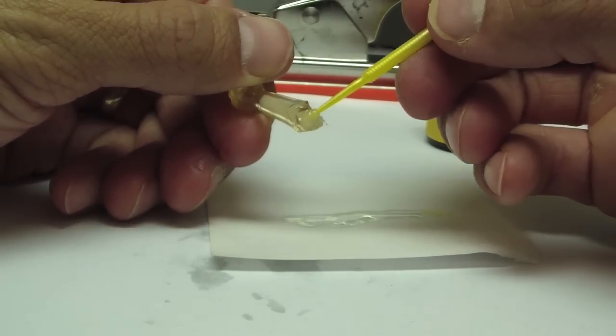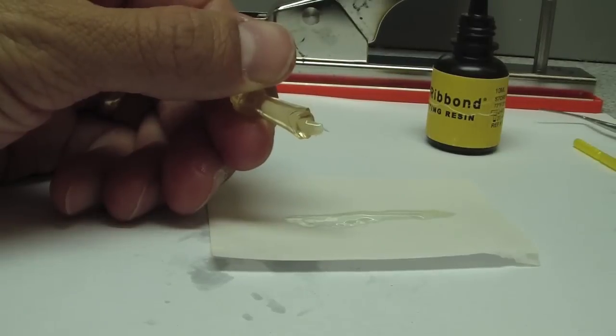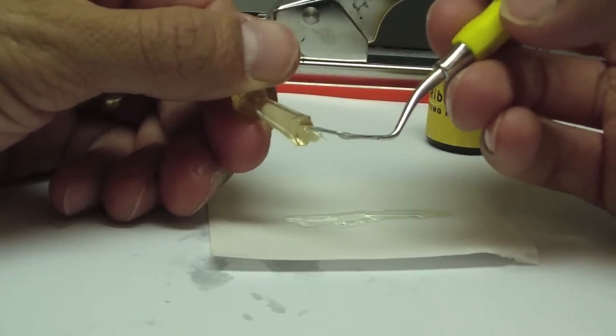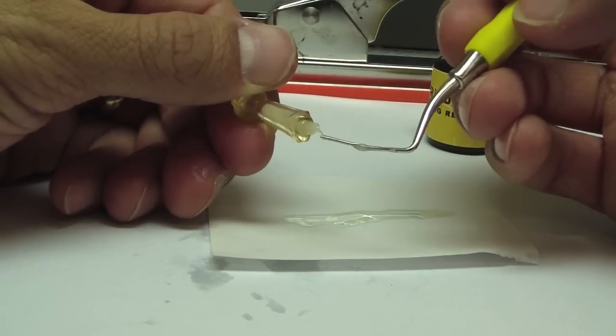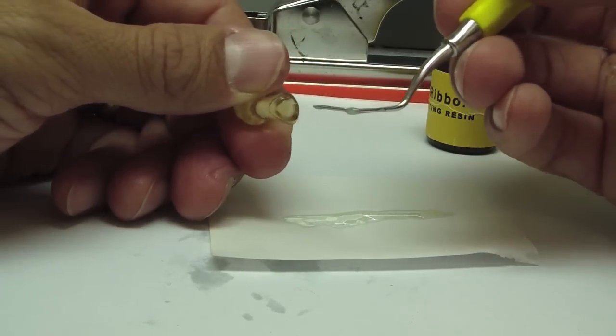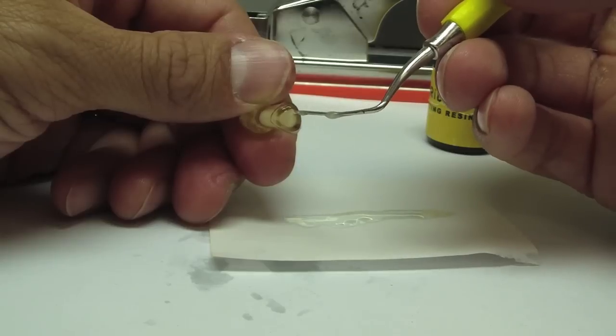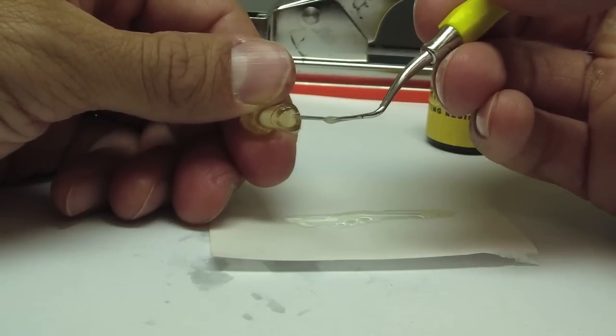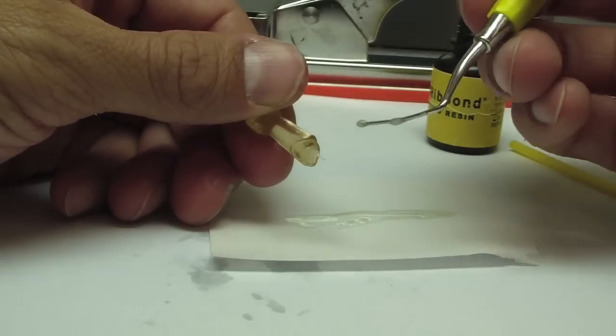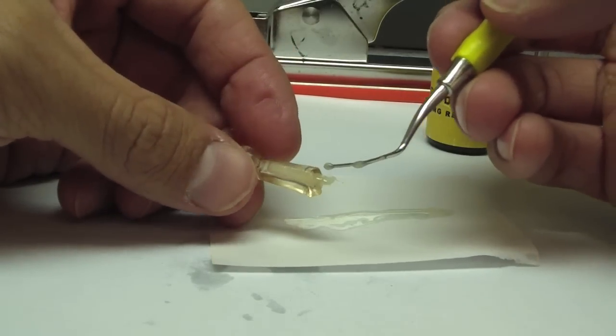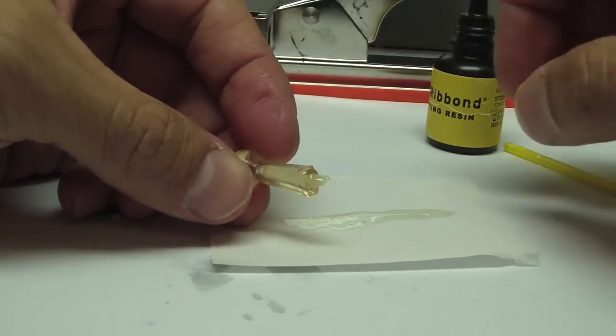In review, I like this because I'm not removing any more tooth structure in an effort to fit a preformed post. I'm trying to create a monoblock structure, as well as minimize resin in the canal and create a fiber-rich post, increasing adhesion.